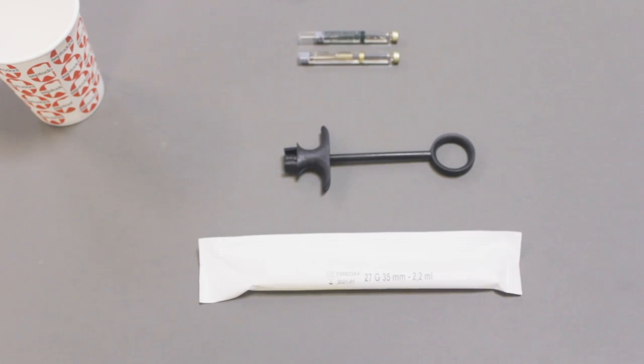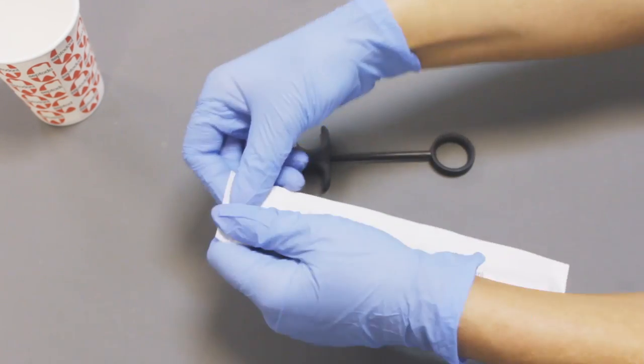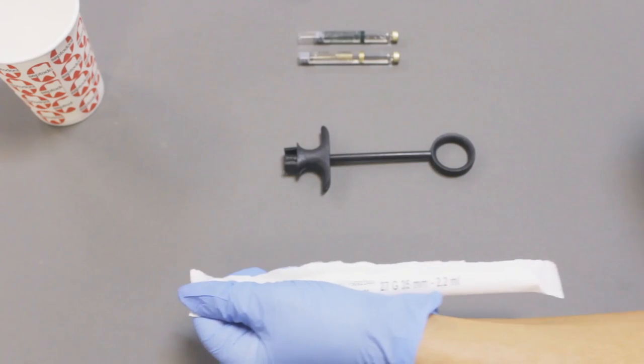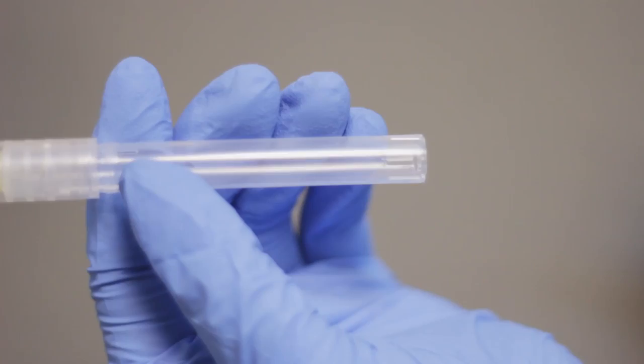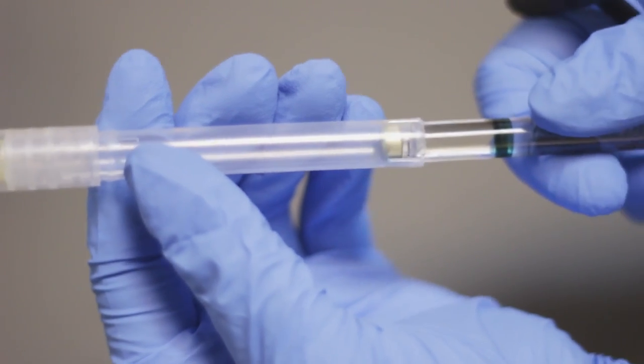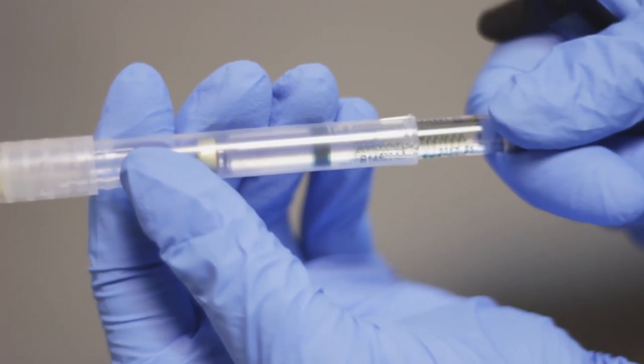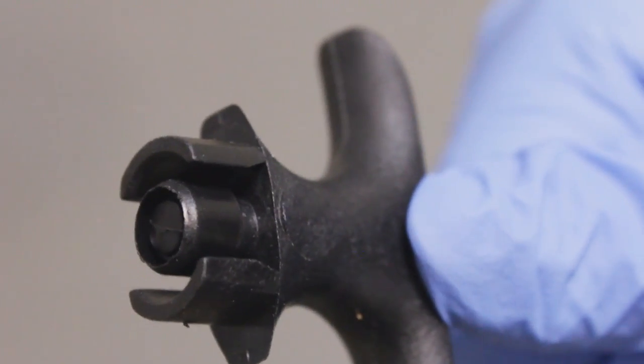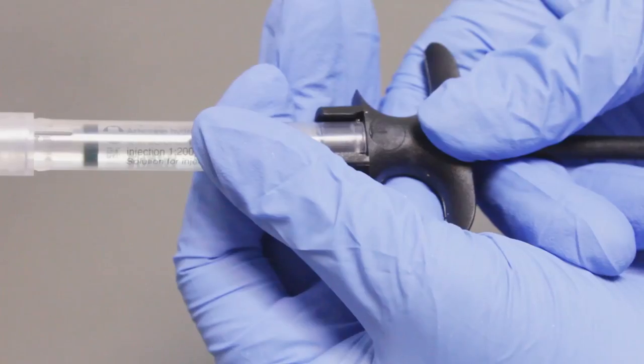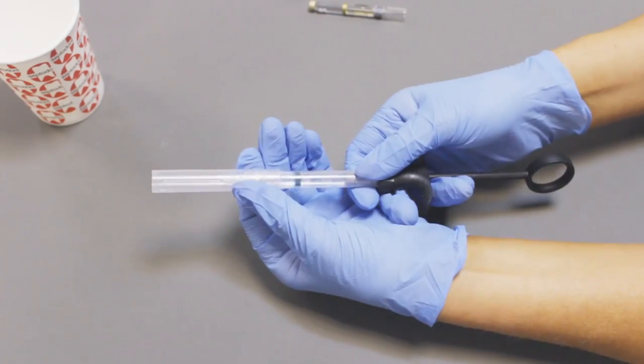Here is how to set up and use Ultra Safety Plus. First, tear open the sterile packaging and insert the local anesthetic cartridge. Take the handle and place it on the Ultra Safety Plus with your thumb and forefinger on the finger grips.